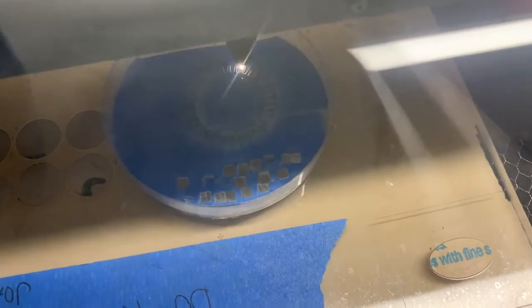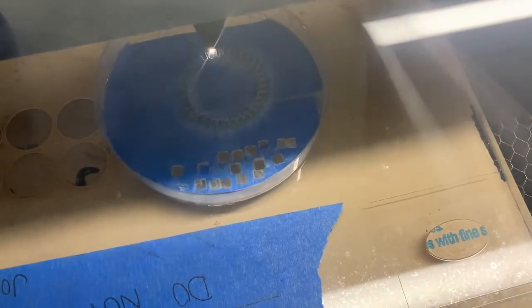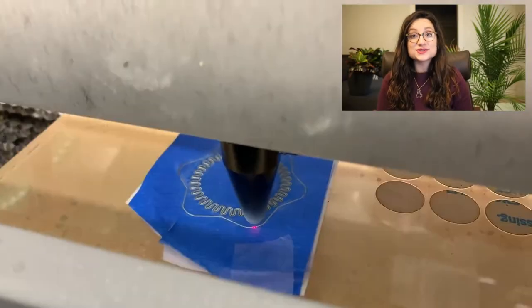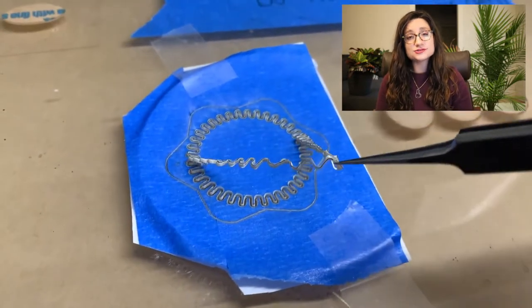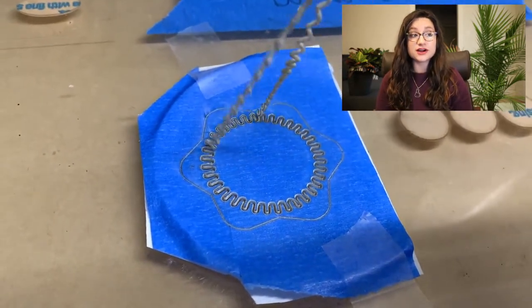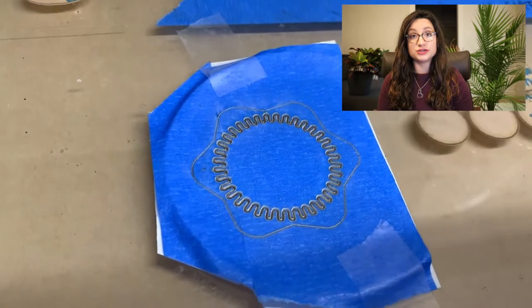This allows the devices to be filled with the medicine that it carries, naloxone, later on. I also use a laser cutting machine to precisely cut various items in the lab and I use what's called a spin coater to make very thin sheets of flexible and stretchy polymers that go into our devices or other ones.